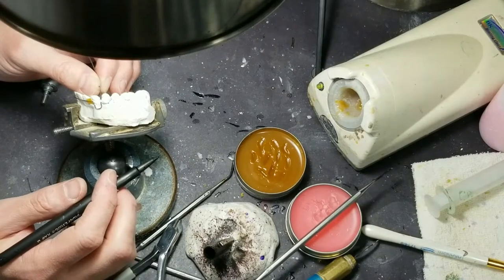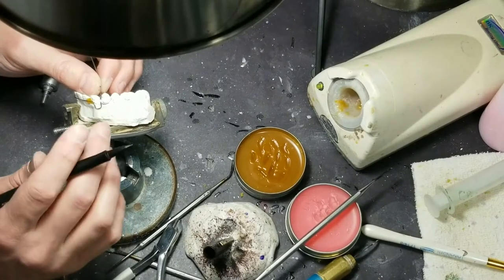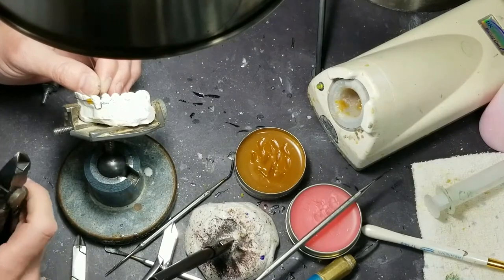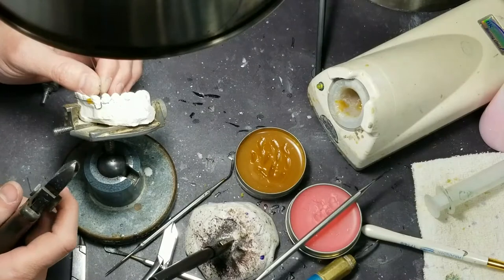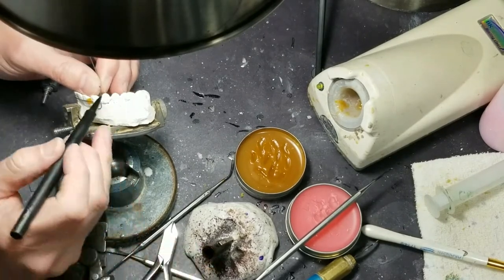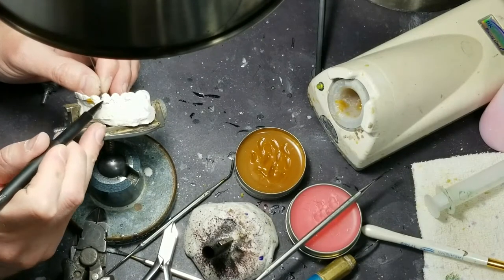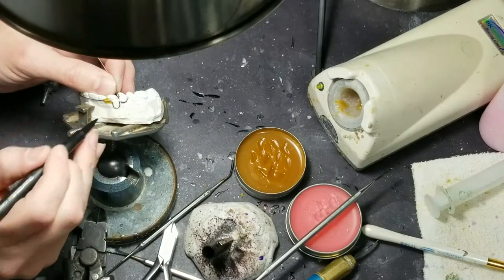At least we know you have clean clothes — it does smell good in here when the washer's going. That's one of the benefits of having a laundry-slash-lab — I call it a laundryatory. I'm going to mark this wire right where it starts veering off from the main wire here.